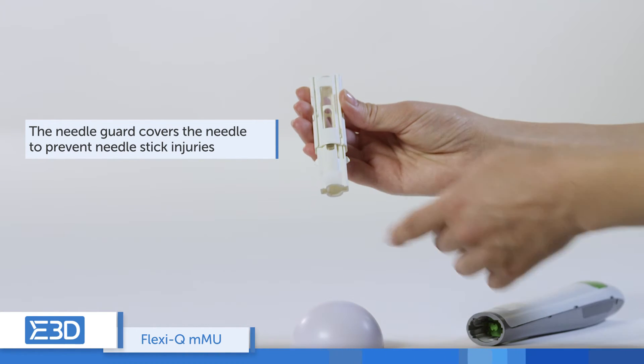Remove the disposable cassette. The needle guard covers the needle to prevent needle stick injuries.